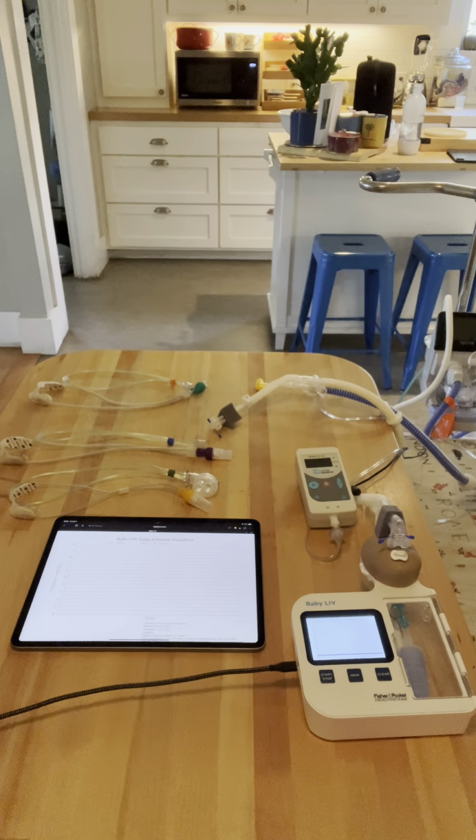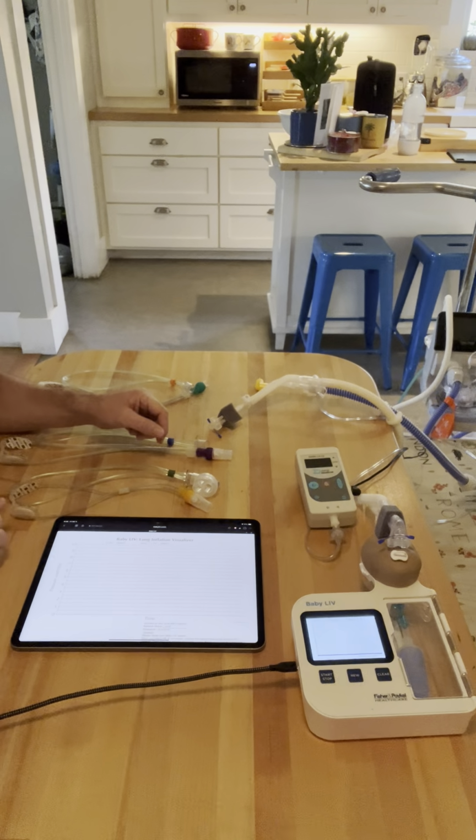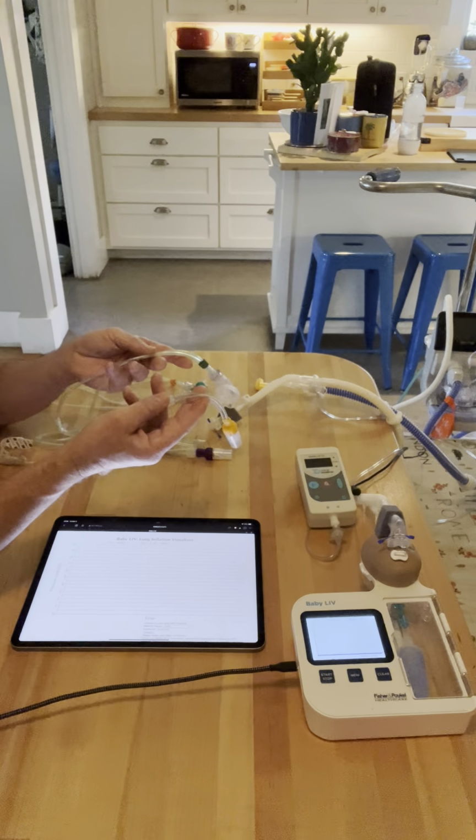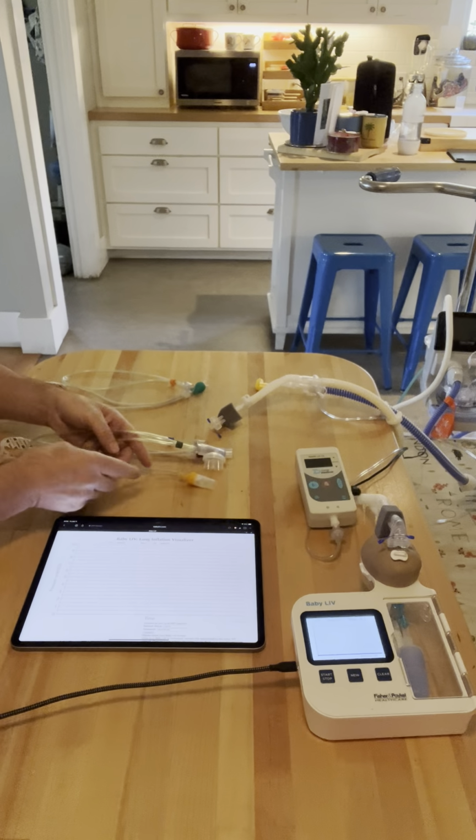I'm going to make a fairly long video today. I have a lot to cover. I've actually received some requests on my new YouTube channel to do a pressure comparison on a bias flow respiratory care system between a RAM cannula and an Optiflow Jr. 2 cannula.